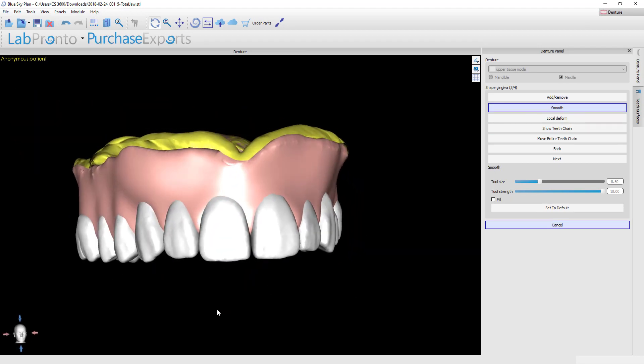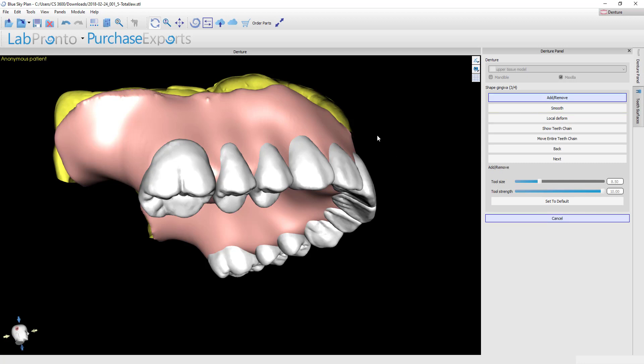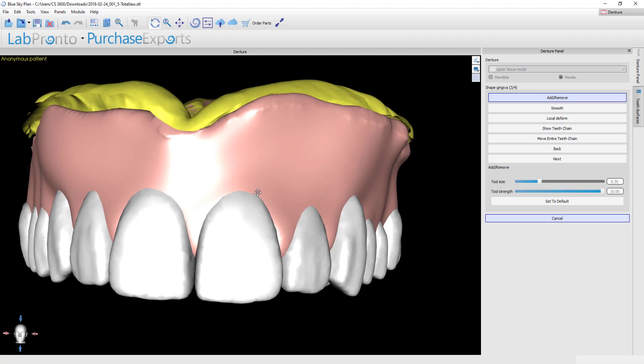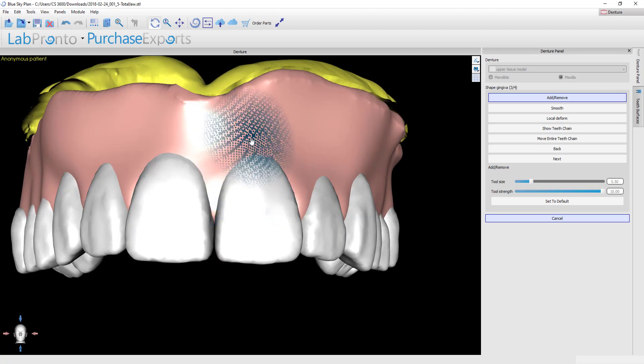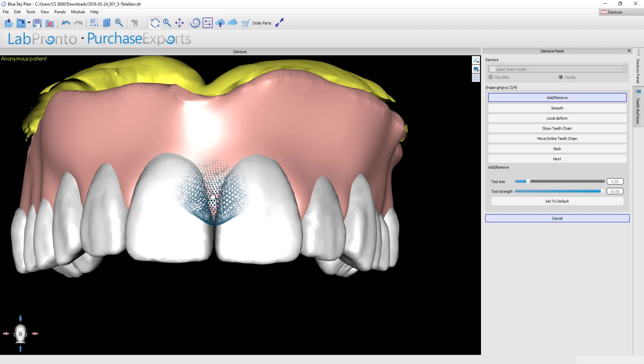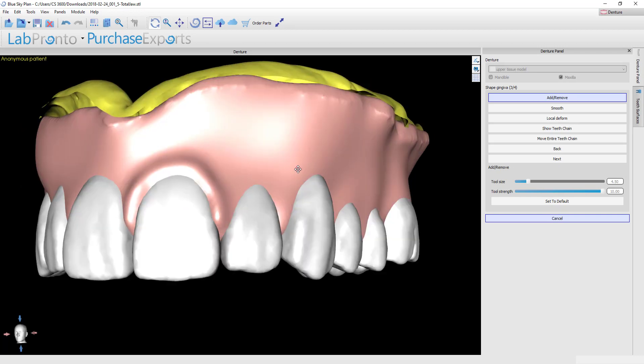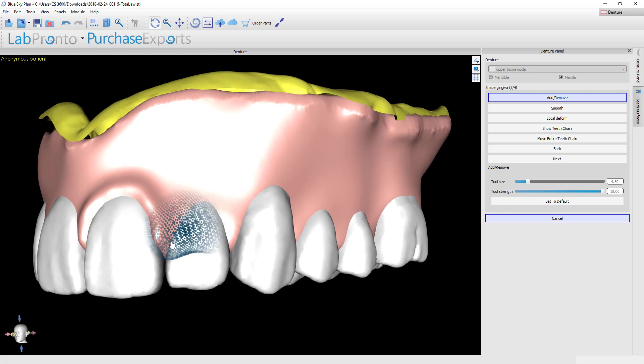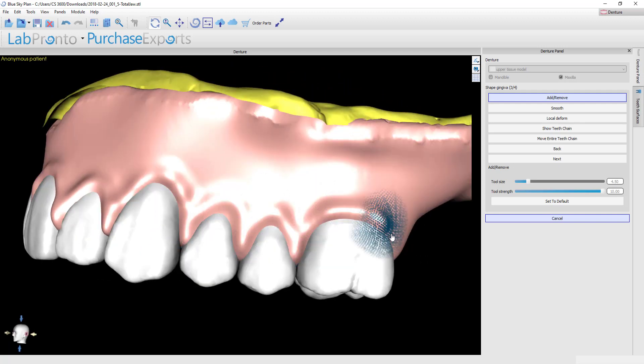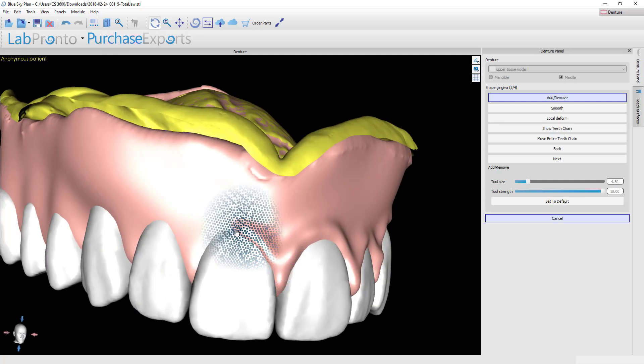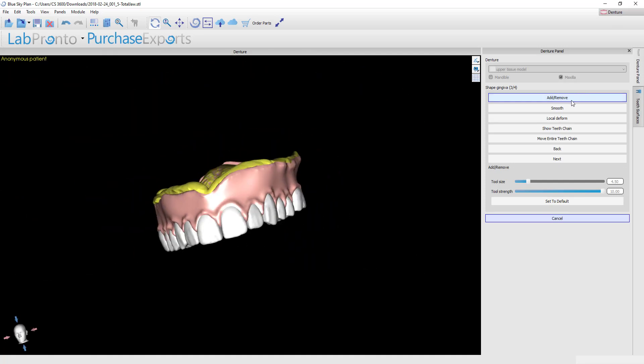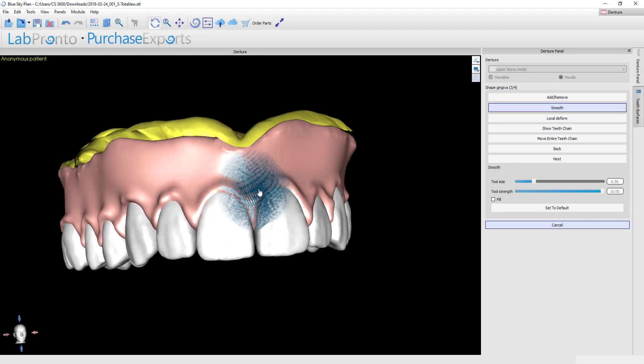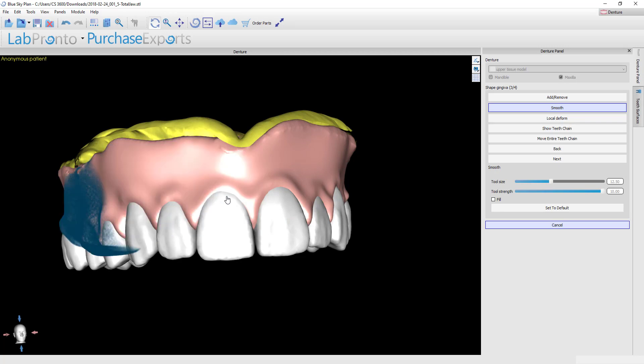If you want to, you can continue to get this as fancy as you wanted to get it. I know some people like to place a gingival roll. I'll show you the technique that I use for that. I like to use the add and remove tool, and I typically will get a spot size of about like so, and then just holding down the shift key, I'm going to go in one big motion all the way around the necks of the teeth. Usually after I create that gingival roll, I come back with the smooth tool again and then I just gloss over that to take any rough edges off.